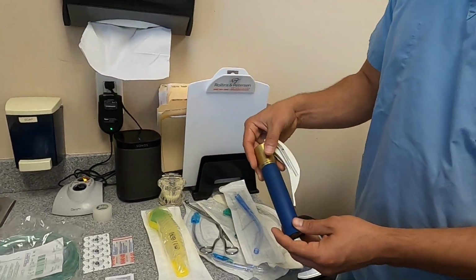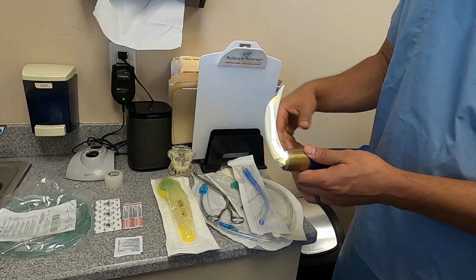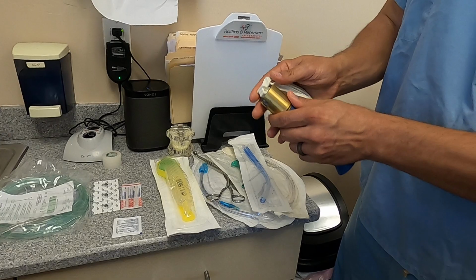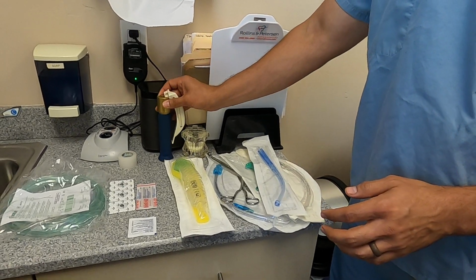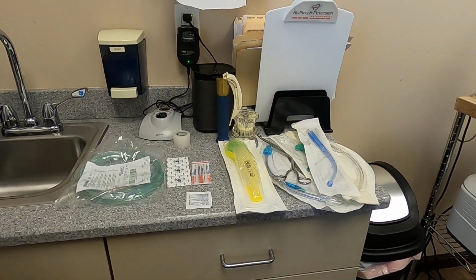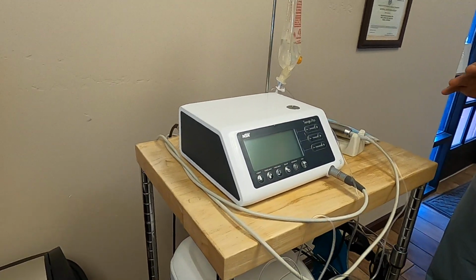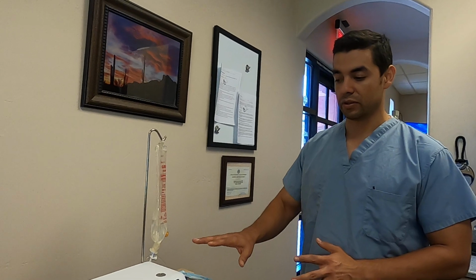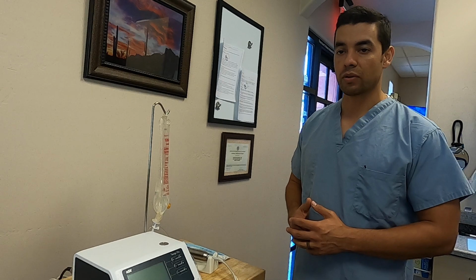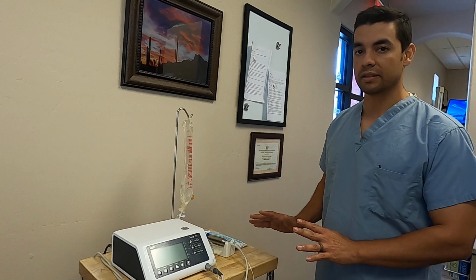Also importantly, we have this instrument here, which lights up. It's good to check and make sure that the batteries are still working when we set up the room. So we have everything here set up for an emergency airway should that ever be needed. When we set up any surgical patient, if we're doing any extraction, I prefer that we have a surgical handpiece ready to go. Even if it looks like it's going to be a routine extraction, it is always a good idea to have the handpiece ready in the case that we need it.